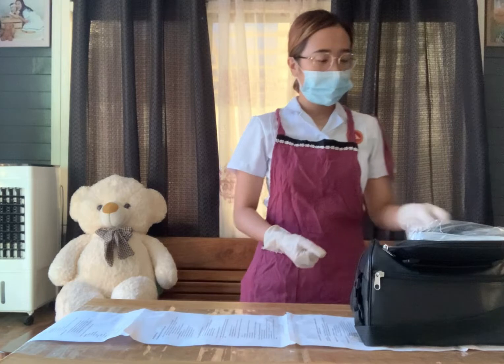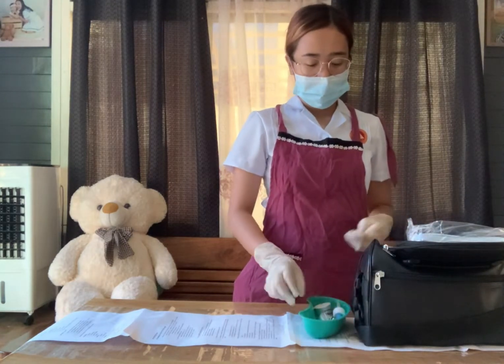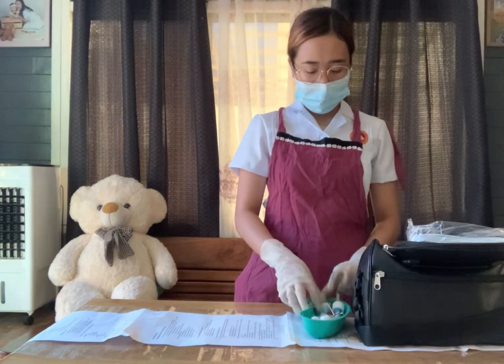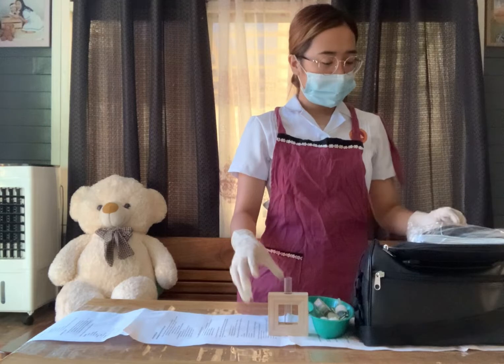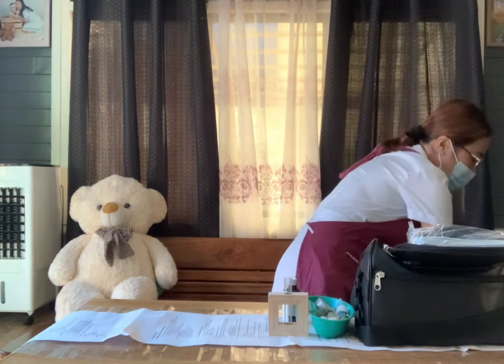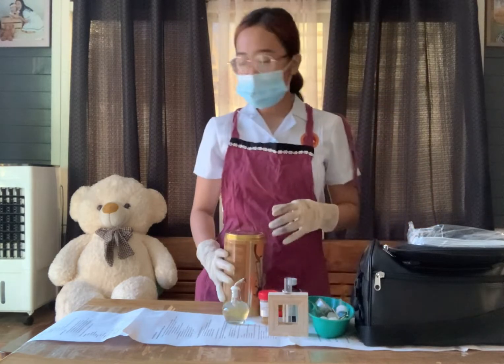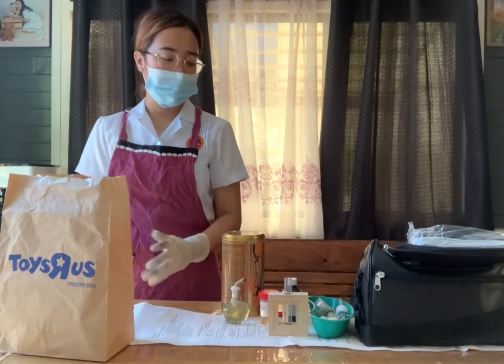After that, prepare the other materials needed. Take your kidney basin together with three cotton balls with alcohol, your test tube holder, your dropper, and your test tubes out of your bag. Also take out the Benedict's solution, alcohol lamp, and match or lighter. Place the waste receptacle on the other side of your workplace area.